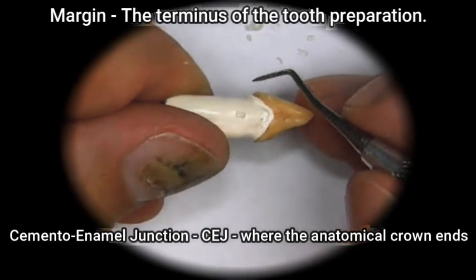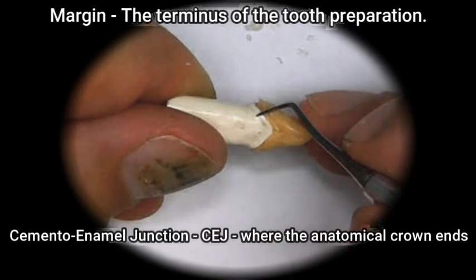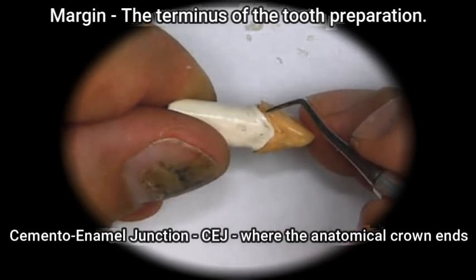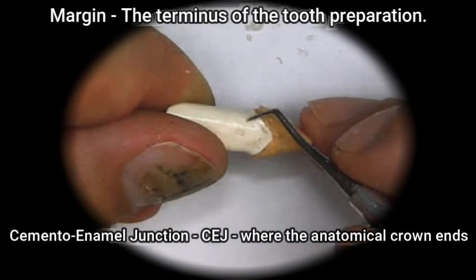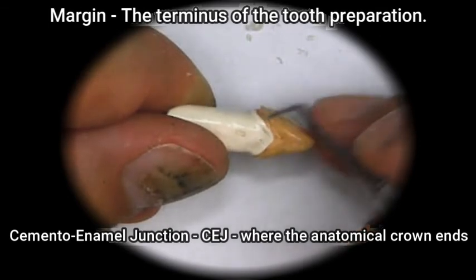So when we wax the tooth, we must wax it so that this area flows with the wax 100%. When we run an instrument across here into the wax, we should not feel this line. It has to be completely smooth.